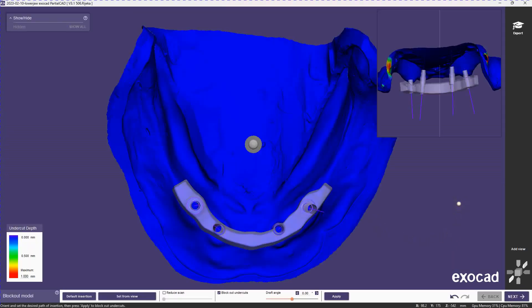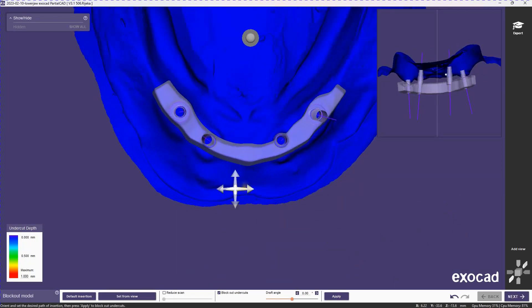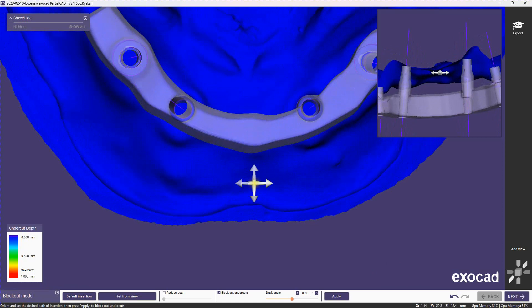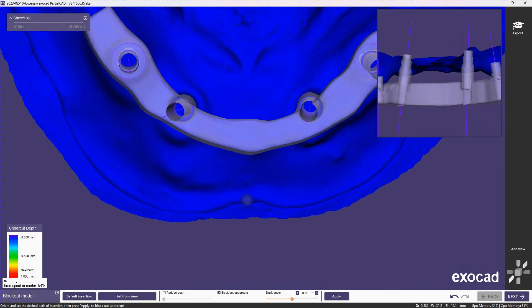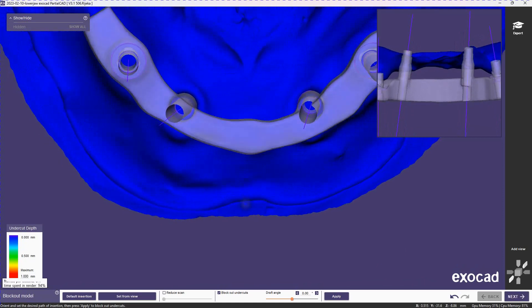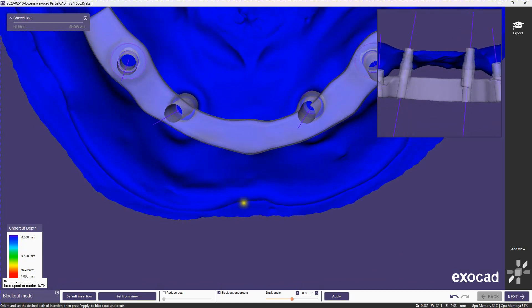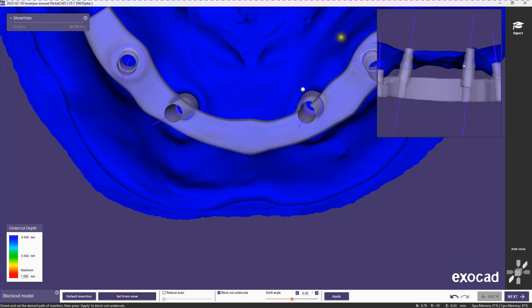So there we have our bar. First thing we're going to do is line it up a little bit. The path of insertion in this project basically has to do with how we're pulling these parts apart or putting them together. You want to try and have your bar lined up more or less path of insertion parallel to the sides of your bar.